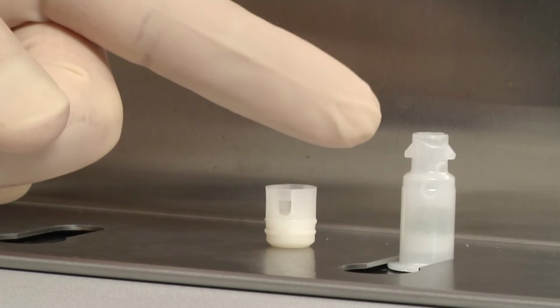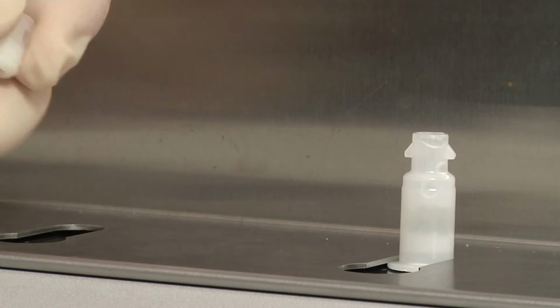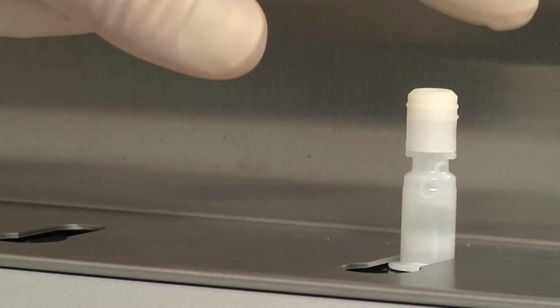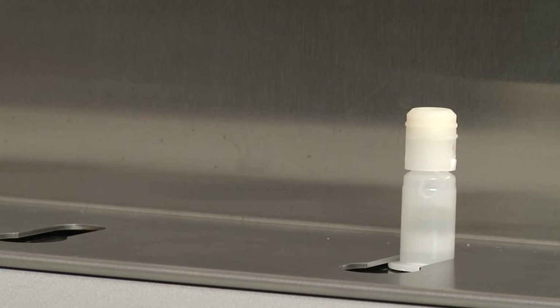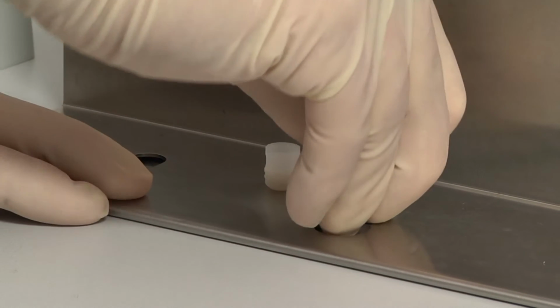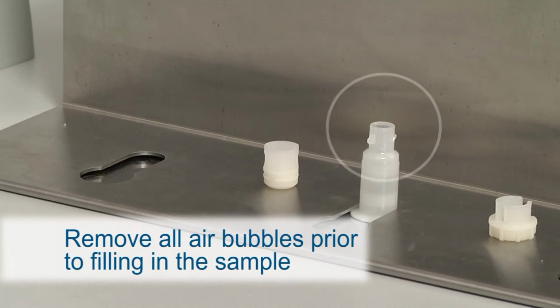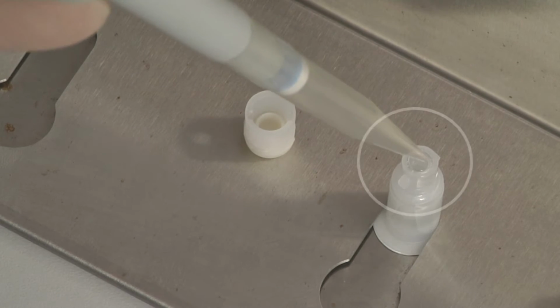Then, close the Unyvero sample tube with the new Unyvero sample tube cap. If you see any air bubbles when opening the sample tube after removing the cap, eliminate them by piercing the bubbles or by gently tapping on the sample tube.